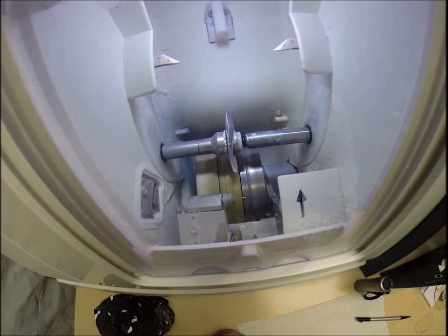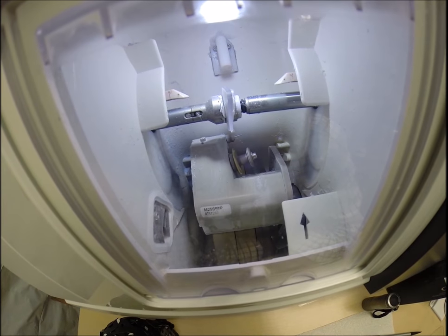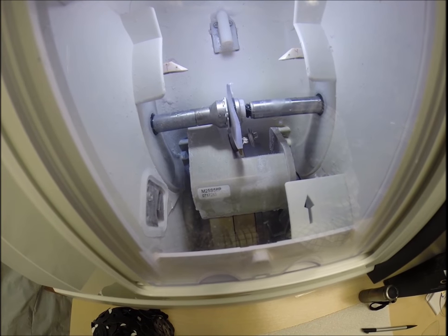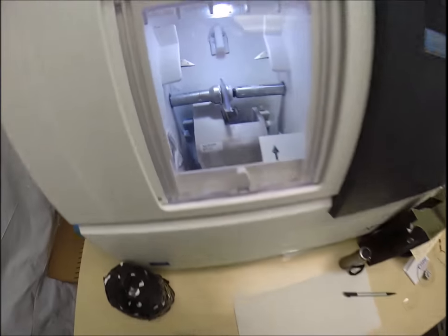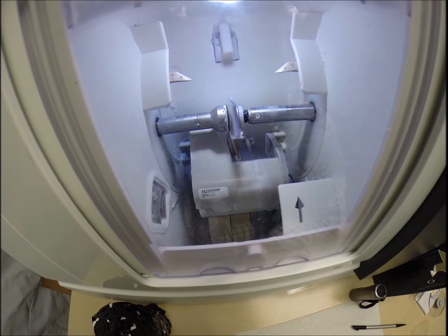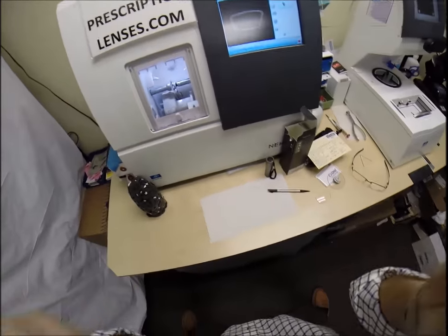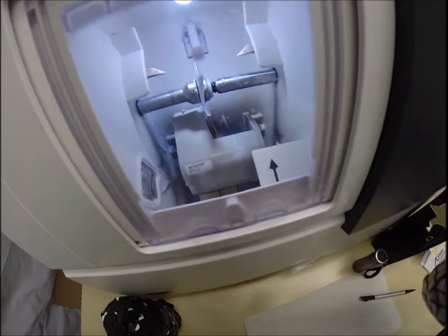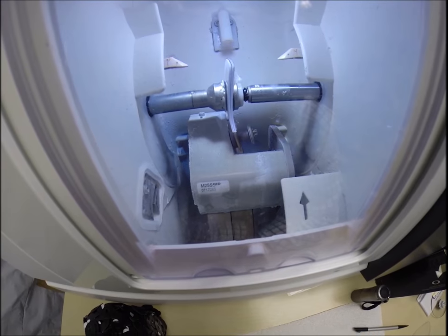The lens is completely flat right now — it could stand up on a counter on its own. The spinning blade is cutting a groove all the way around the lens so it will stay in place, held by a monofilament string — essentially a 20- to 30-pound fishing line. Should you ever step or sit on this frame and the string breaks, the frame goes limp. With a plastic or metal frame, if you step on it, it breaks and nothing can be done. If you're rough on glasses, this is a nice design — don't let people tell you it's weaker because of the string.